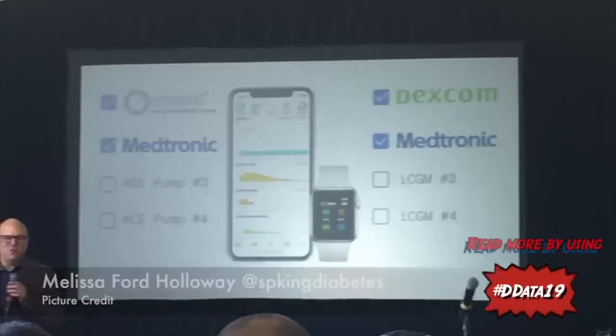I do have two areas worth paying attention to: the first is commitment and the second is pricing. On commitment — I've been doing YouTube for seven years and it does feel like I've made a similar video in the past: Medtronic pump and Dexcom working together.